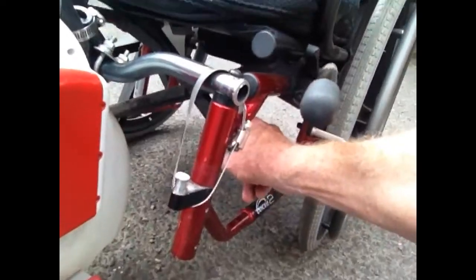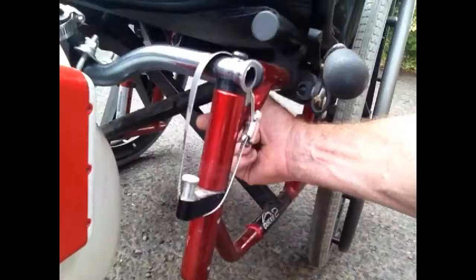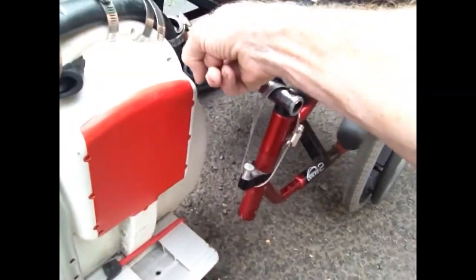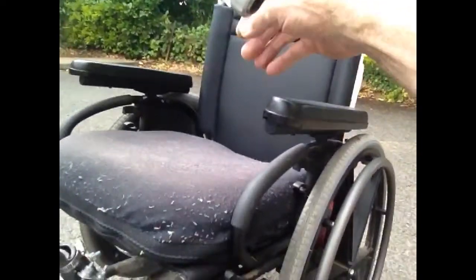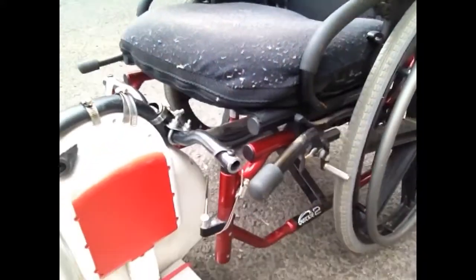To hook it onto the back end of the wheelchair, I took off the wheels and the footrests that folded inside to make room. You've also got to make sure your wheelchair folds up in the center, not in the back or the front — because if you unfold it you might have to lift it higher to get above this point here, and it's liable to throw your fulcrum off. You need to have weight in between the back wheels and the unicycle for it to work right, otherwise you just spin the wheels and nothing happens, or you might fall over backwards.